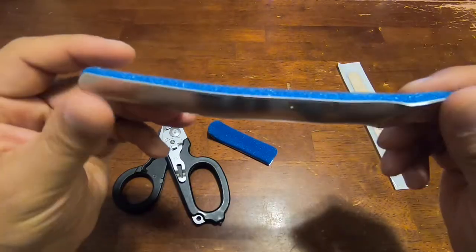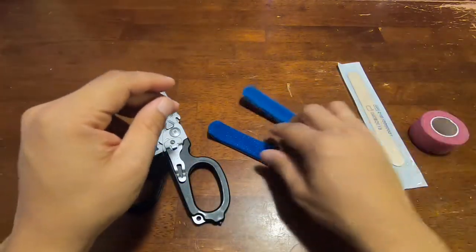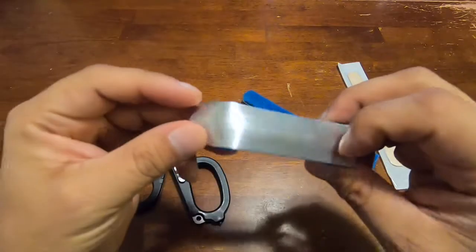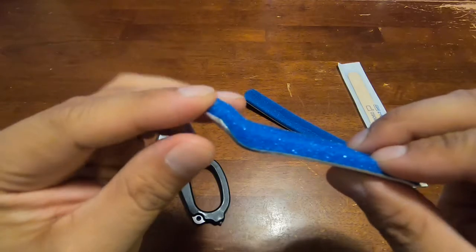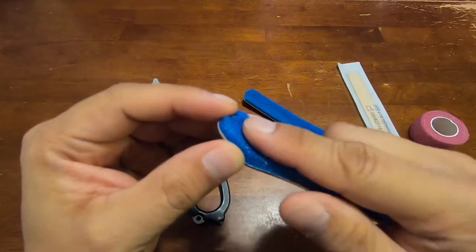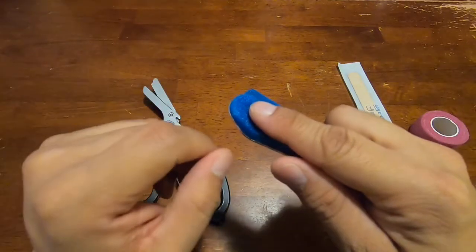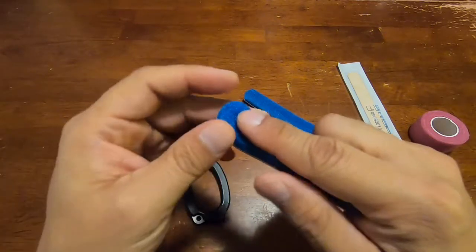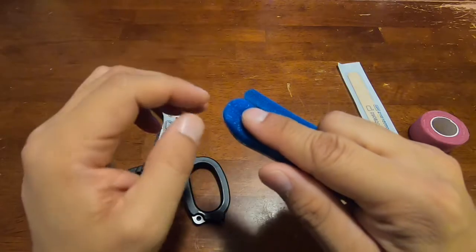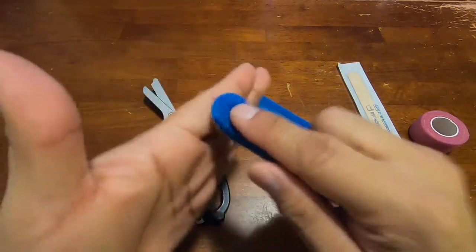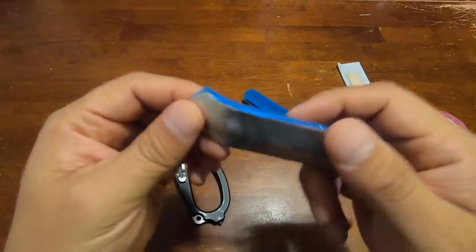You have some that are prefabbed with this angle bent into it, and this is great for distal injuries that are furthest away from the body—finger lacerations that are sutured or any wound. It just helps with bumping it and minimizing the pain.